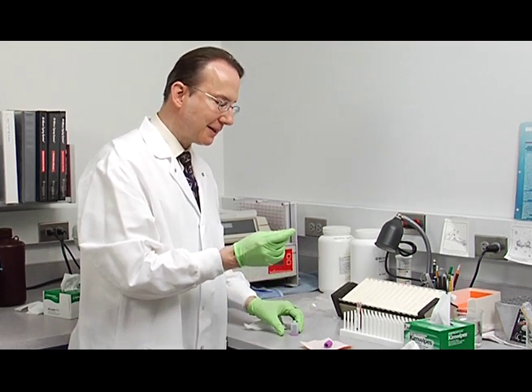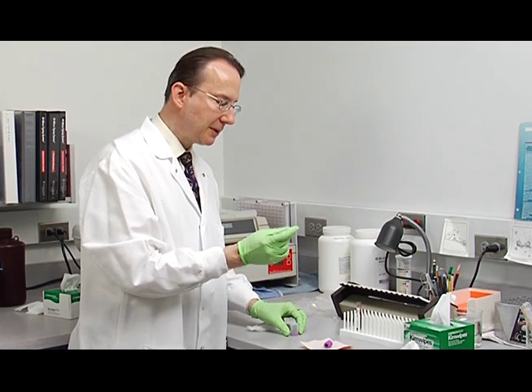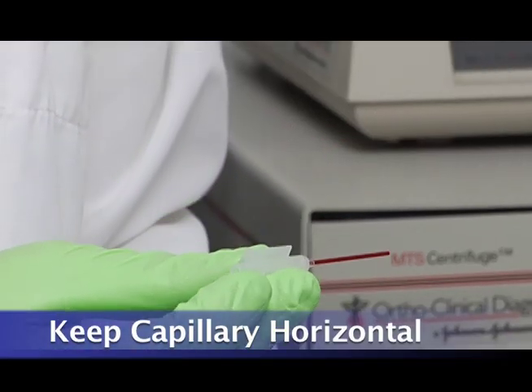Then, don't tilt the tube down. Keep the capillary horizontal, just like this.